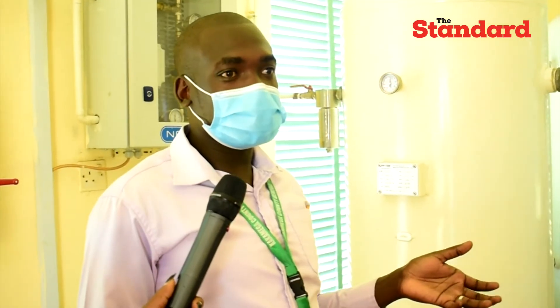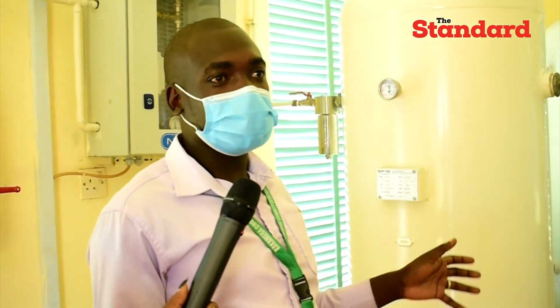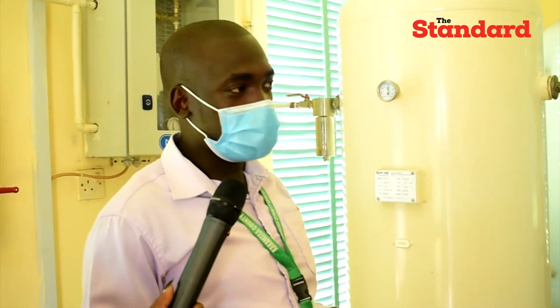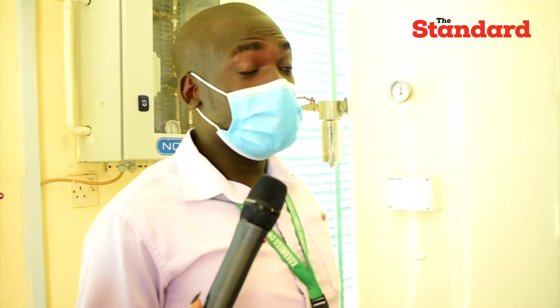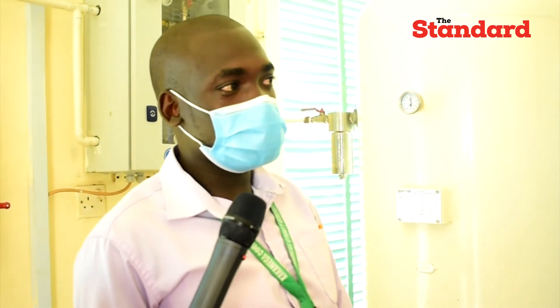When the plant is going down, we are able to hold oxygen that can serve the entire hospital for about 4 to 6 hours under normal consumption. As a facility, we have over 35 oxygen cylinders that can store oxygen to be refilled, and they can also be used in an emergency when the plant is down or under service.